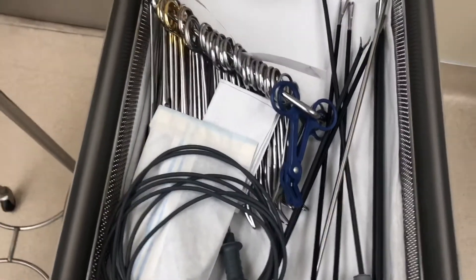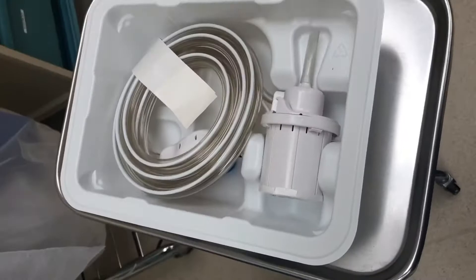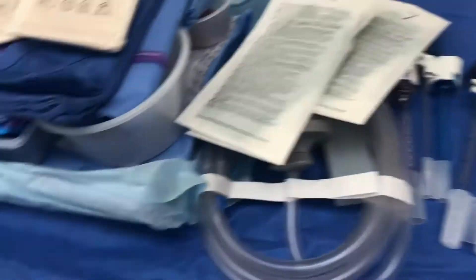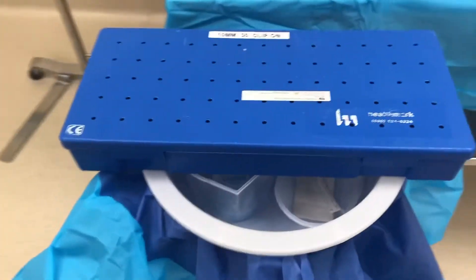Here's what you're going to need. This is my instrument tray, my scope tray, this is a suction irrigator which is used to suck blood and irrigate in the abdomen, some trocars and insufflation tubing, my whole pack, another scope, my basin set, and my gown.